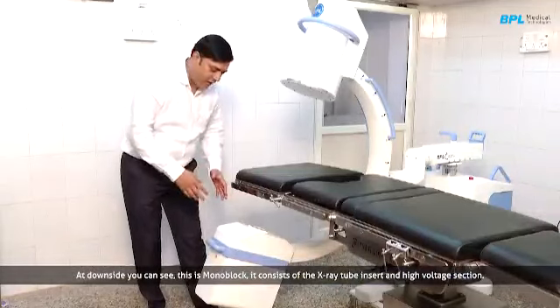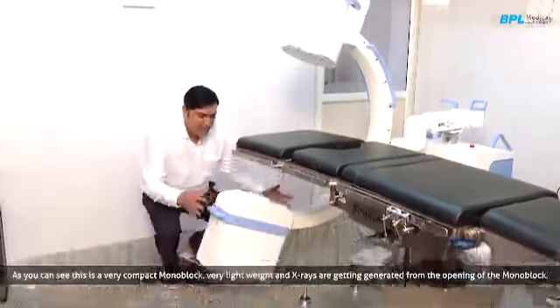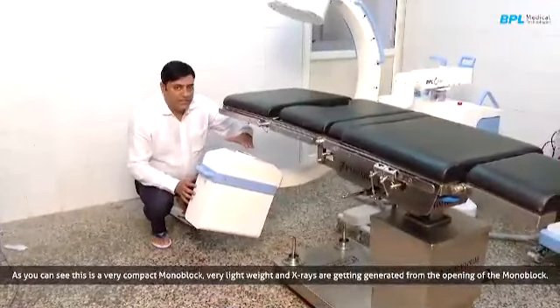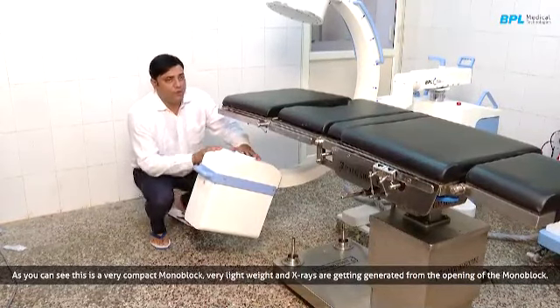At the downside you can see this is the monoblock. The monoblock consists of the X-ray tube insert and high voltage section, and you can see this is a very compact monoblock, very lightweight, and X-rays are generated from this opening of the monoblock.